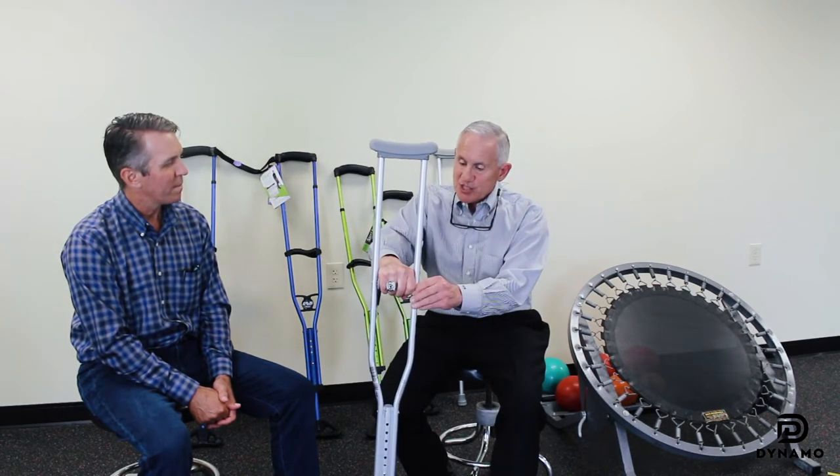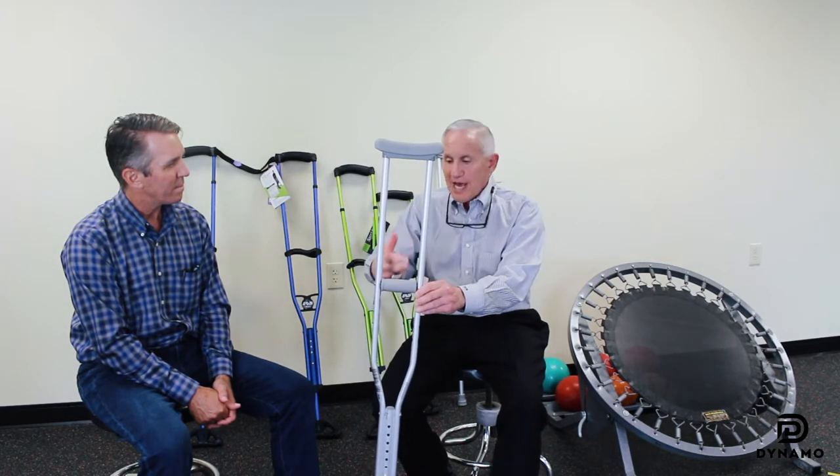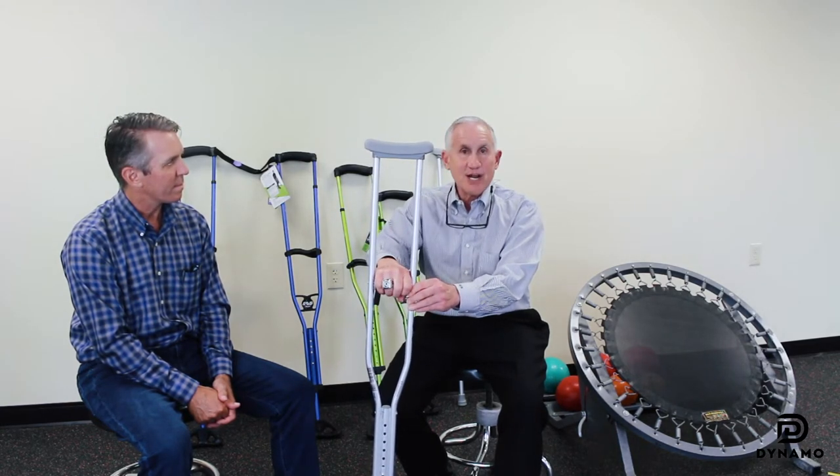You've got a hand plate that has a really small grip. If you had a large hand, you'd have to wrap a bunch of material around it to expand it. And if they had too small of a hand, they couldn't really get a good fit on it.